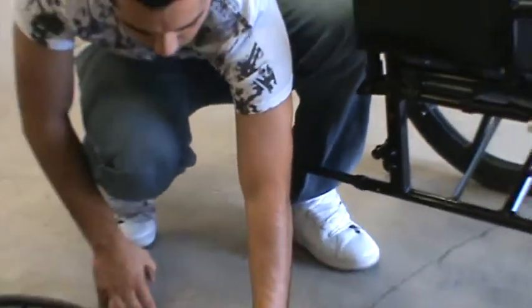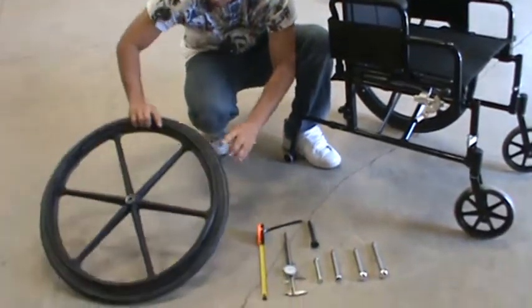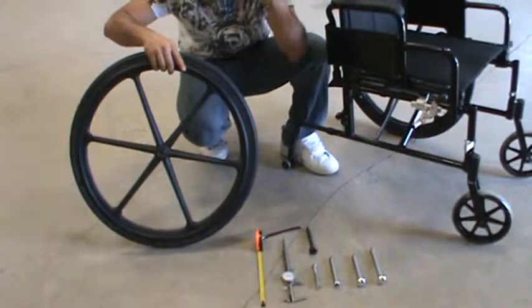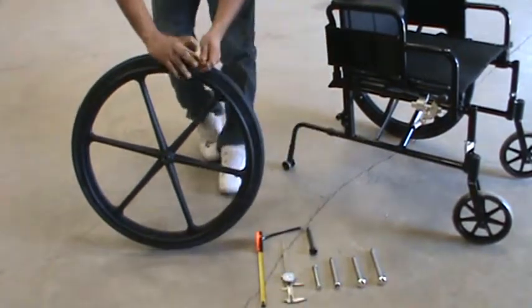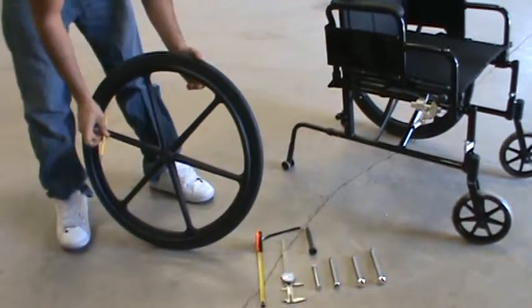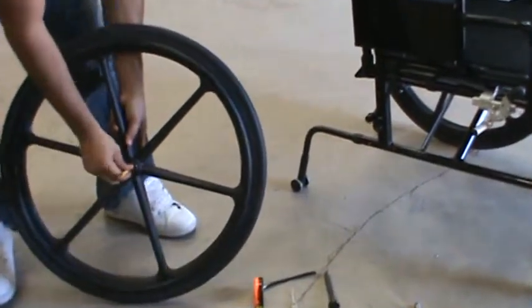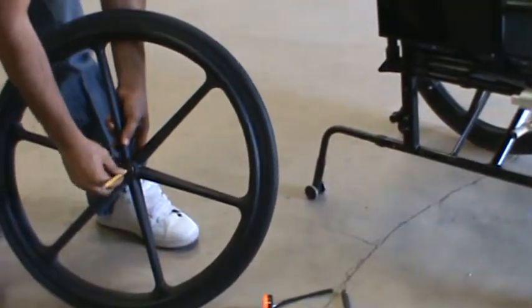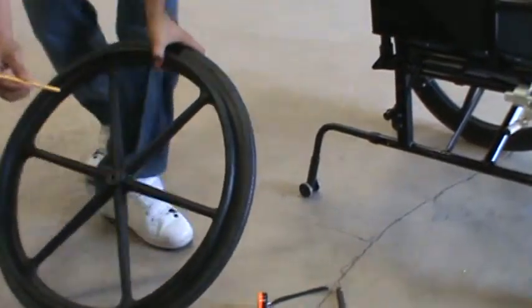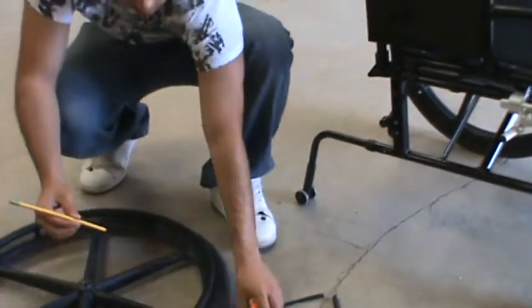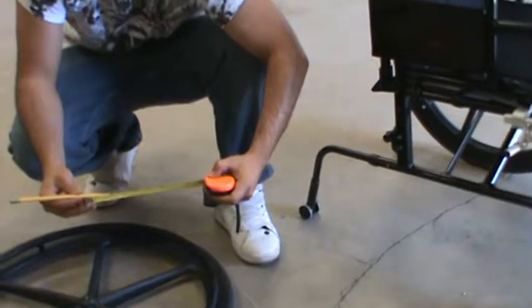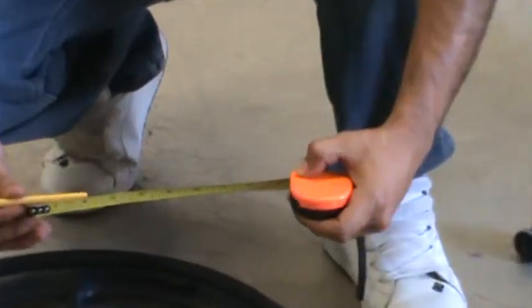Then there's the rear wheel hub. You'll measure the hub length, which is the distance between the outside of the bearing to the outside of the other bearing. You can do this with a pencil even. Put it through the center, hold it where it ends, measure it on a tape measure, and it comes out about 2.1 also.